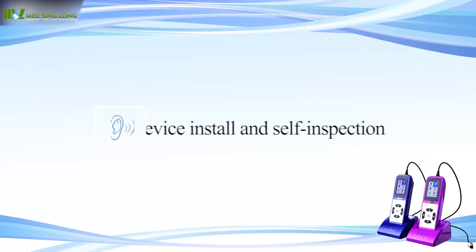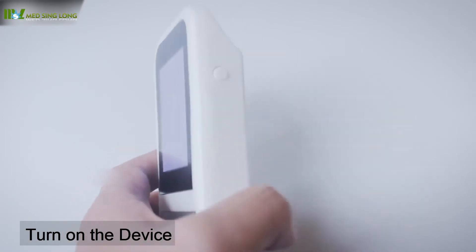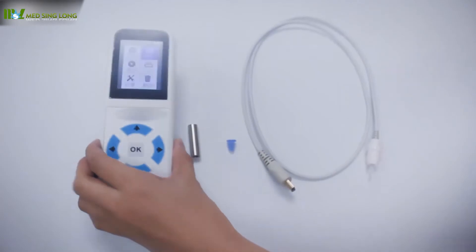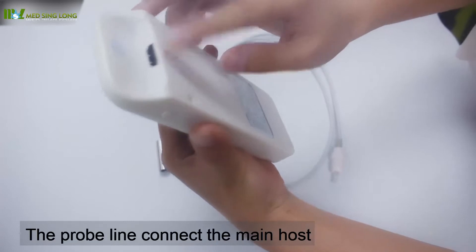Device installation and self-inspection: Turn on the device. The probe line connects to the main host.